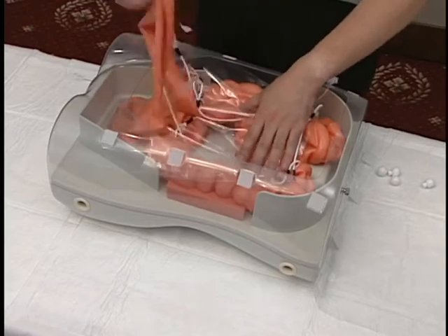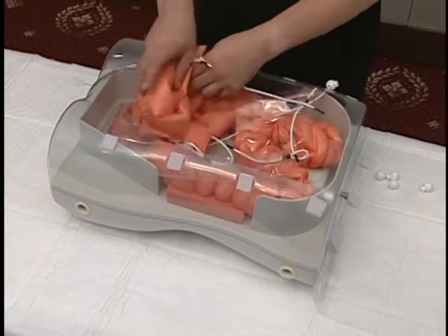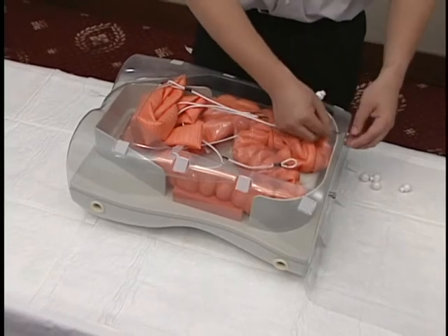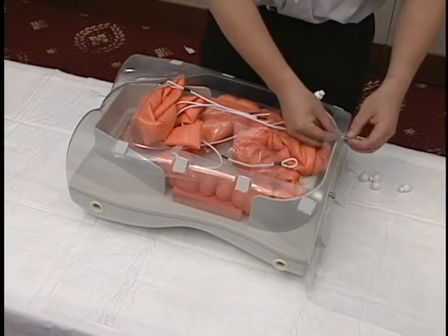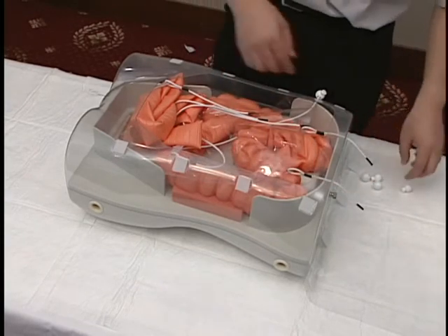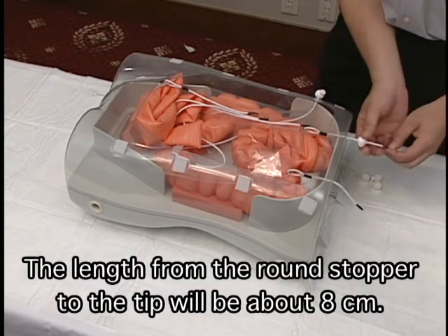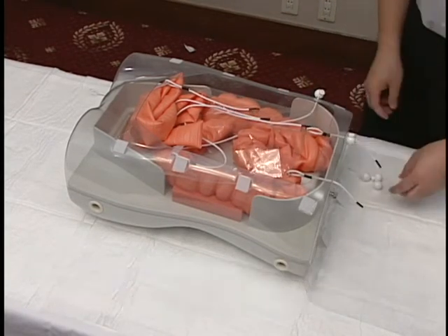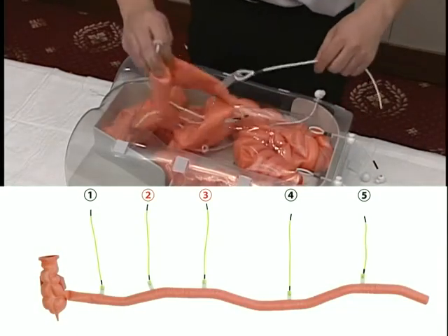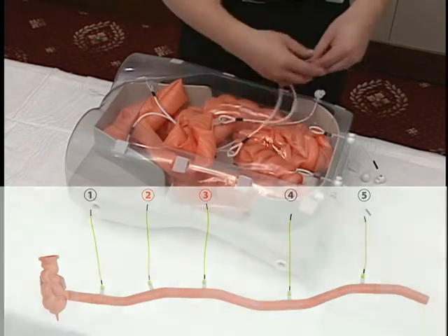Pass the small intestine through the hole in the intestine separator sheet. Pass the small intestine from the ascending colon side up to near the first rubber strap. Pass the rubber strap of the intestine separator sheet through the hole in the transparent cover and secure in place with the round stopper. Pass the second and third rubber straps from the ascending colon side through the hole in the transparent cover and secure in place with the round stopper.